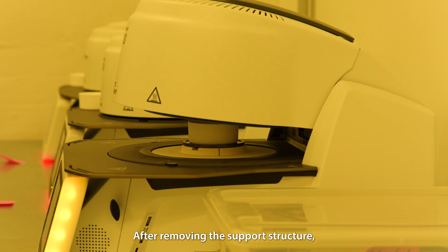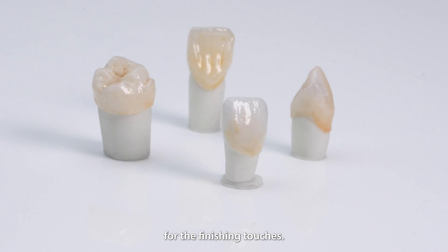After removing the support structure, the dental restorations are ready for the finishing touches.